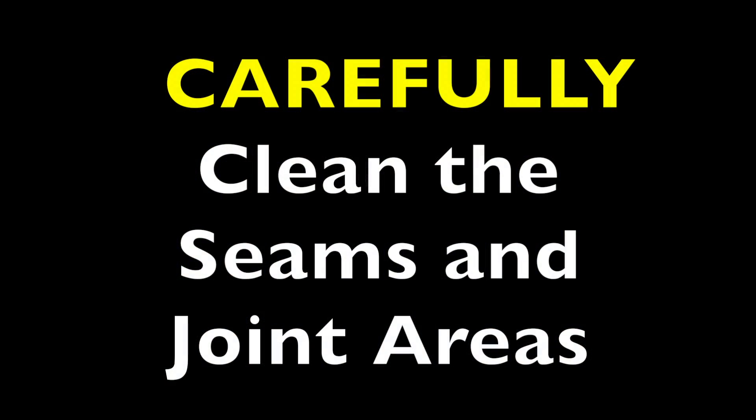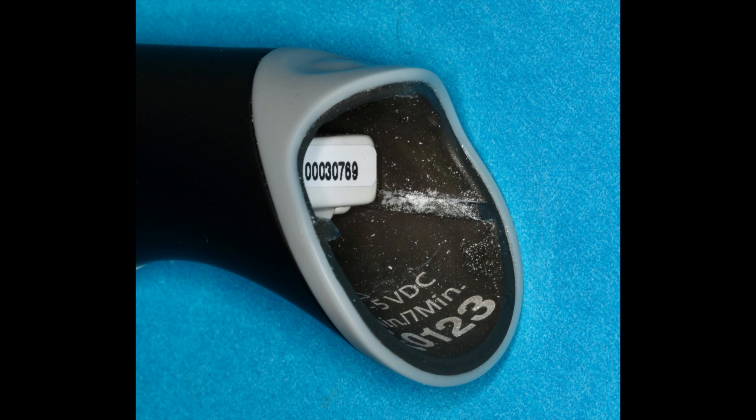Any seams or joint areas should be cleaned. Here we can see some debris in that one. So we just go around with the CaviWipes and just clean it really well.